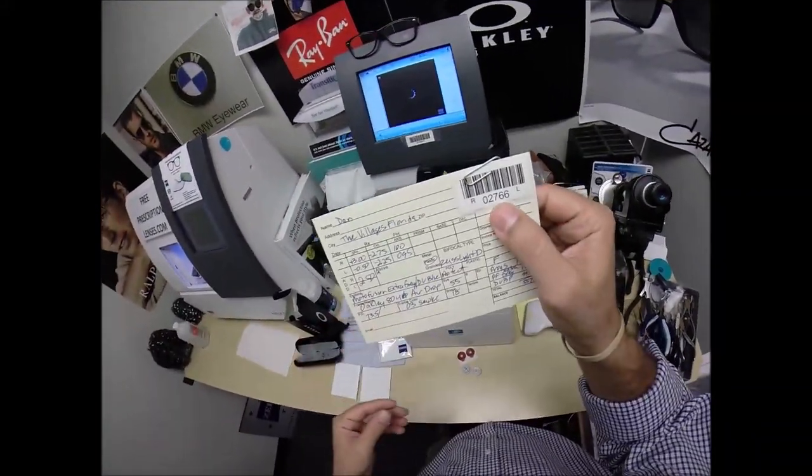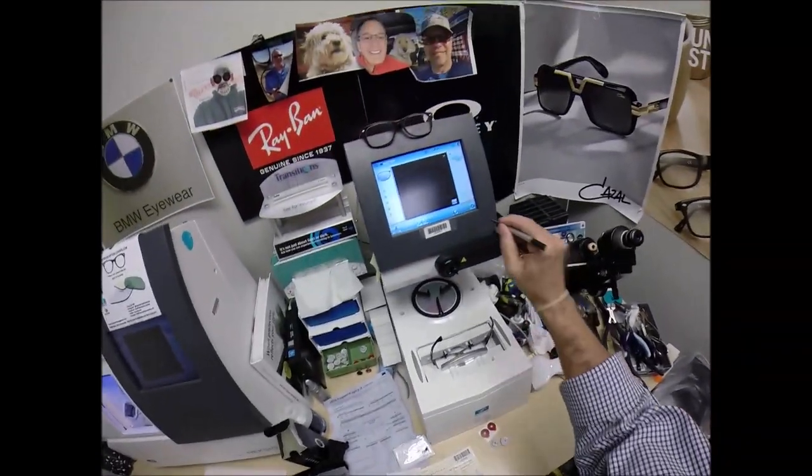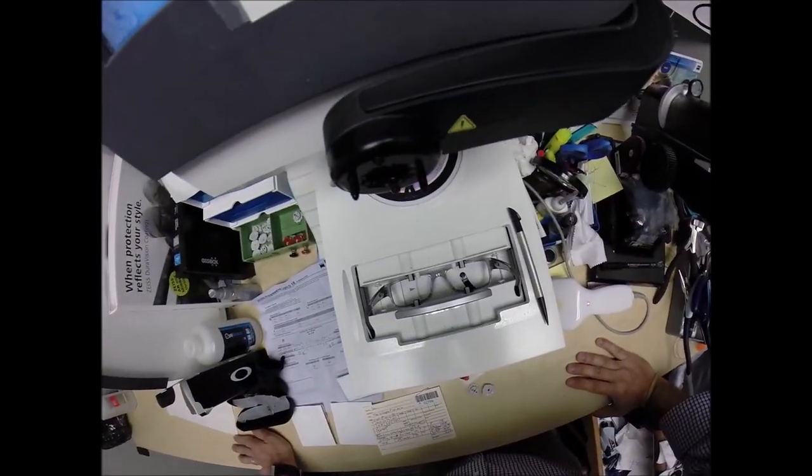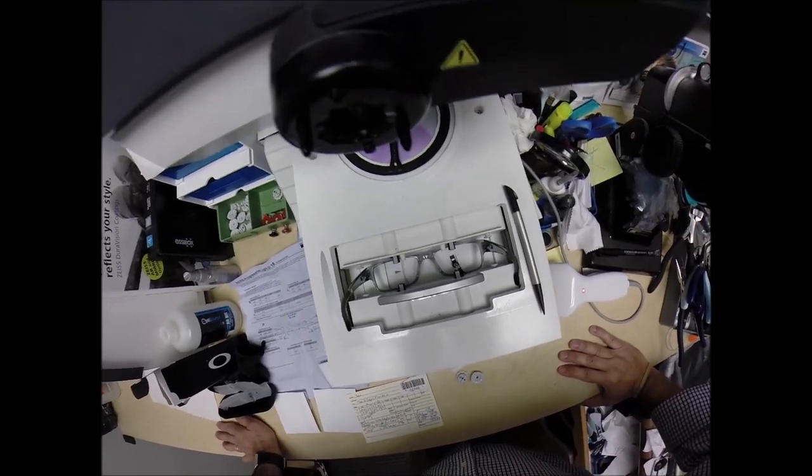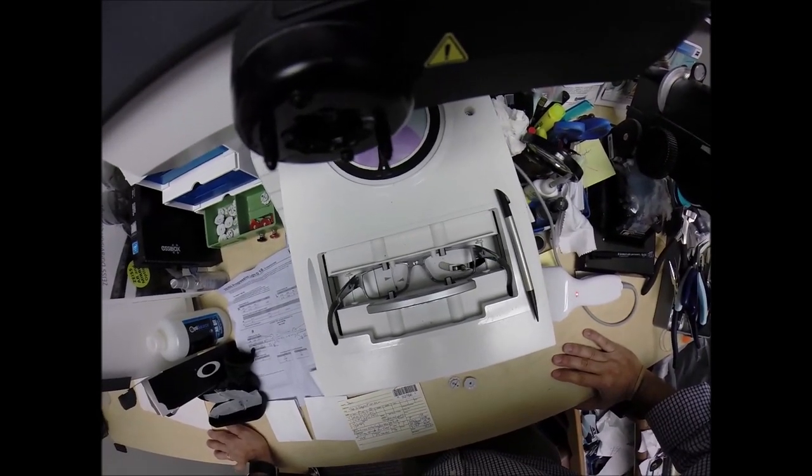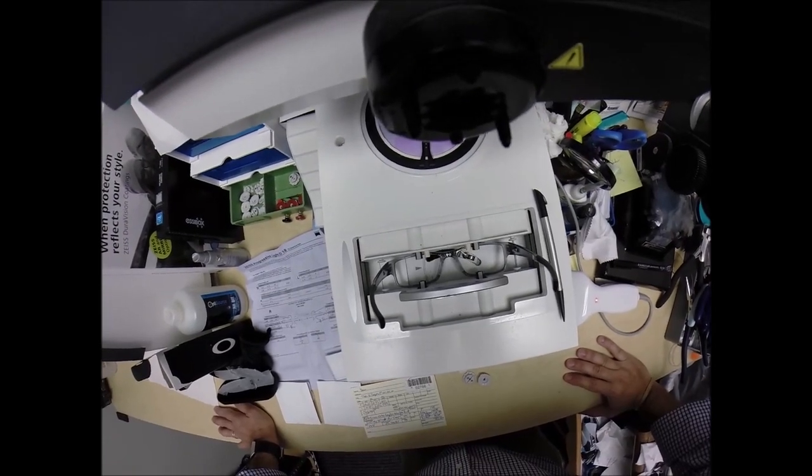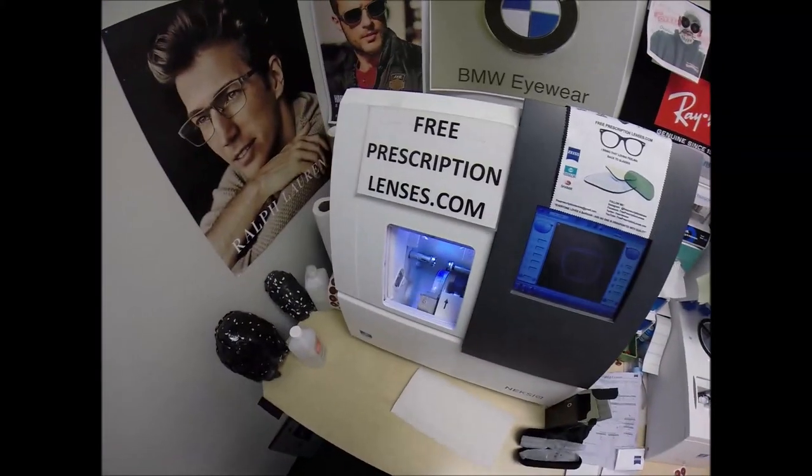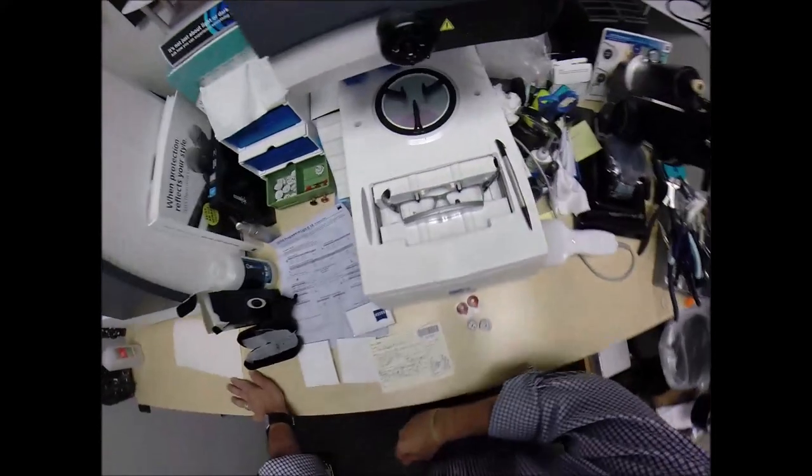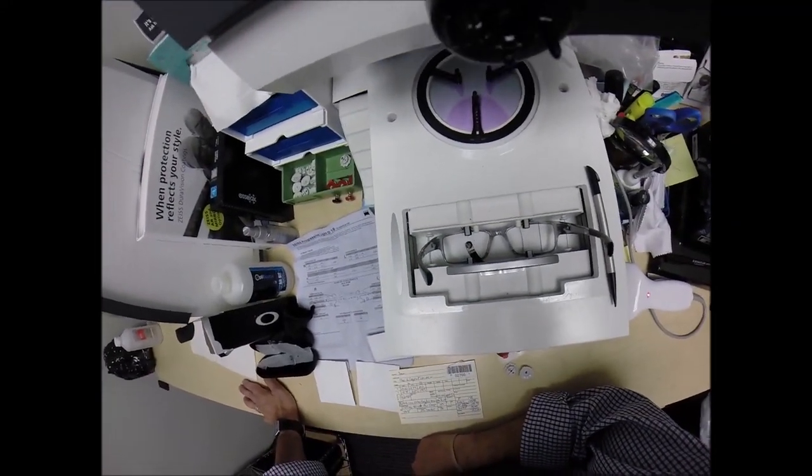You are secret agent 2766. So years from now, should you ever need new lenses for your frame, I can mail them right to your home and you'll see how to pop them in. A little stylus is going to pop up. Go around, trace the inside bevel of the right side of the frame before doing the same thing on the left here at freeprescriptionlenses.com where everyone loves a bargain and no one is disappointed in quality.